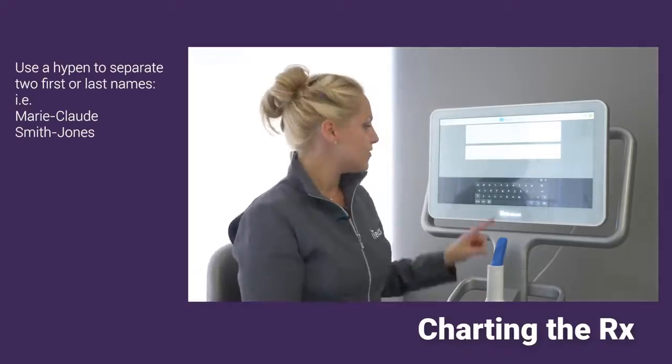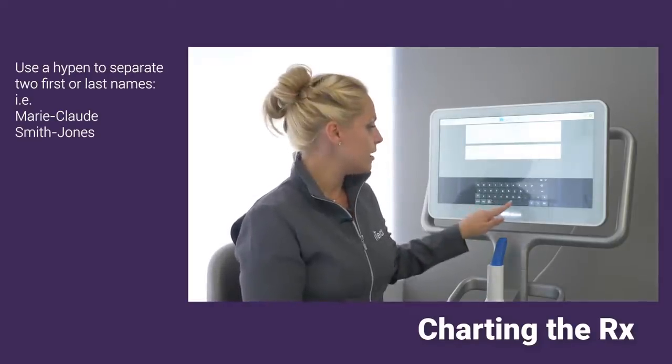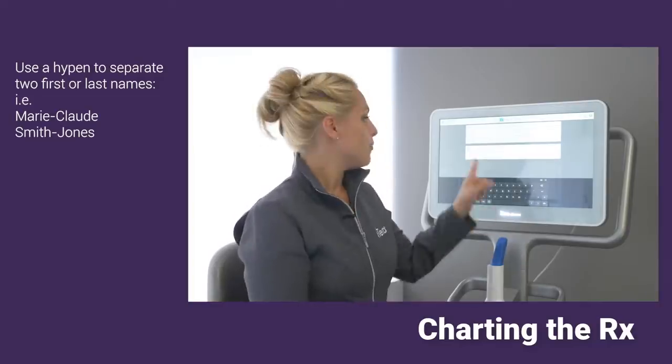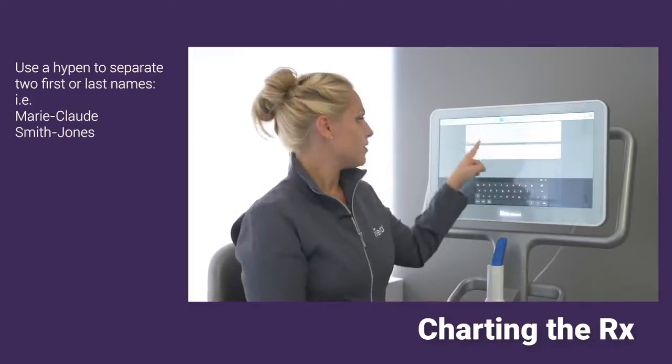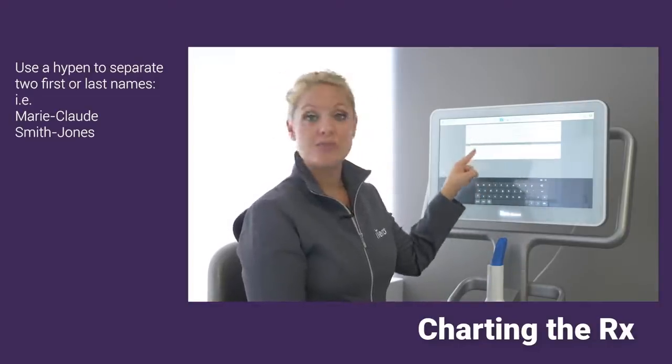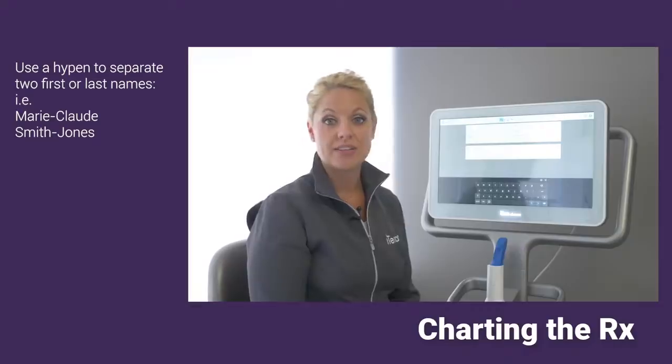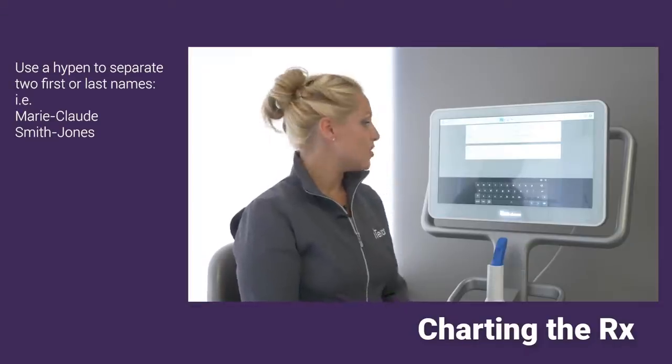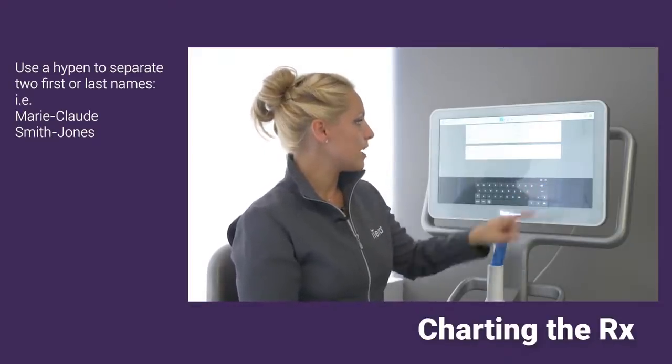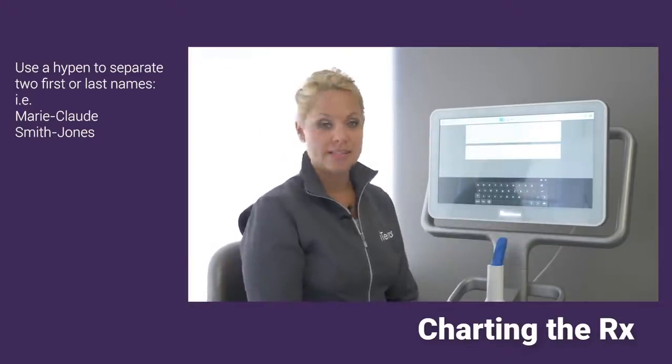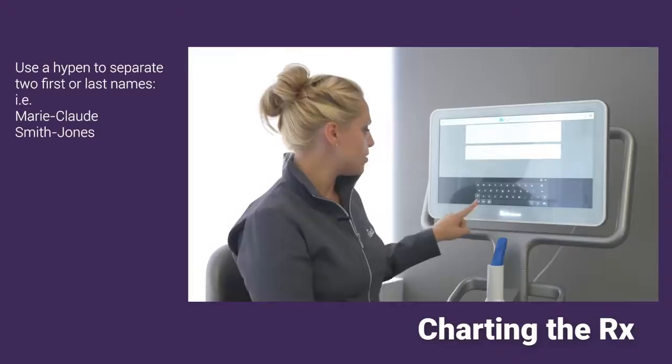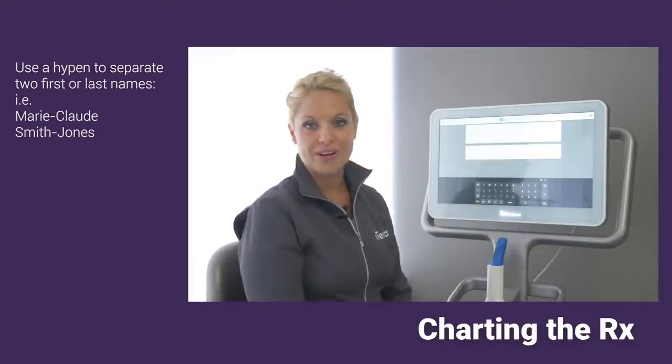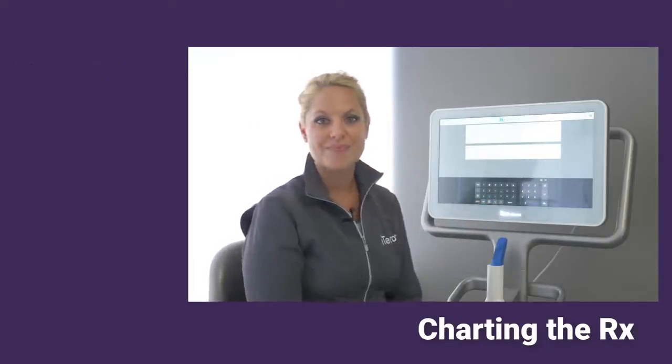Now if you do have any patients that have a hyphen last name, you'll notice if I do try putting a space, we will have the text turn red. We have a reminder saying that we have some invalid characters. You can back arrow to get rid of the space and if you do need to enter a hyphen, you can do that within your characters.